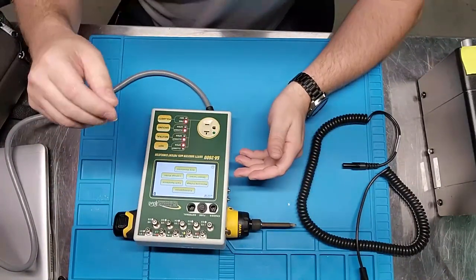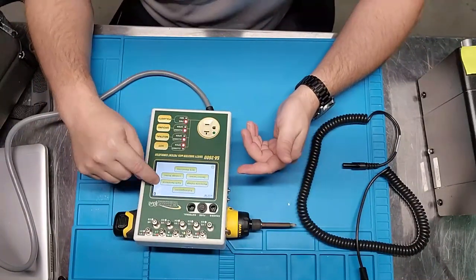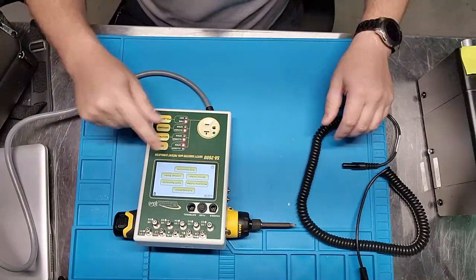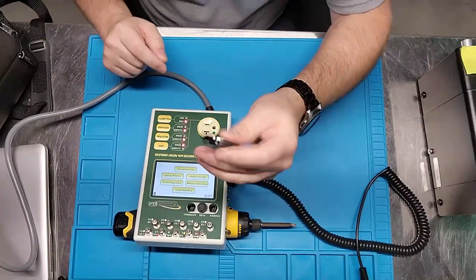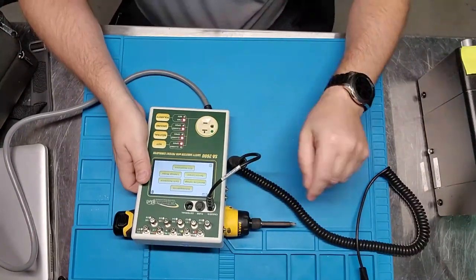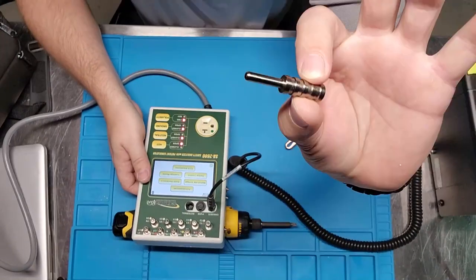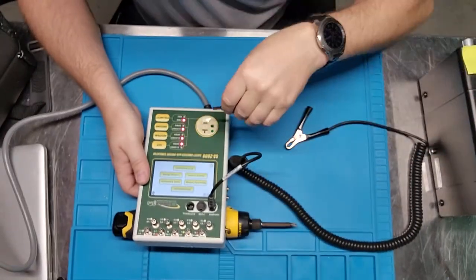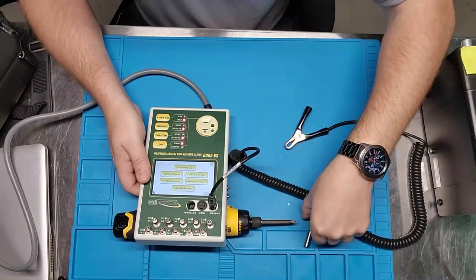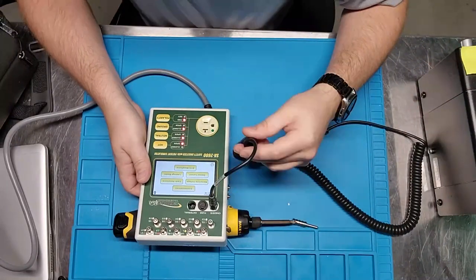The main menu has auto sequence, mains line voltage, earth resistance, leakage modes, device current, ECG waveforms, and settings. I'm going to plug my probe into the chassis port. Also included in the kit is a little adapter for zeroing out your probe — I'll definitely be using that in just a minute.